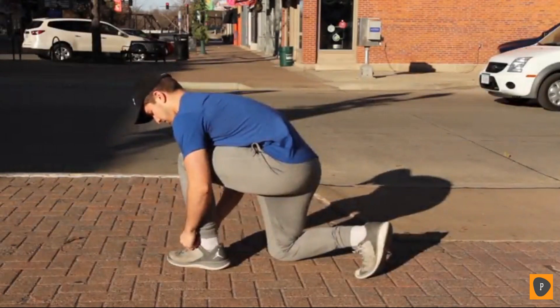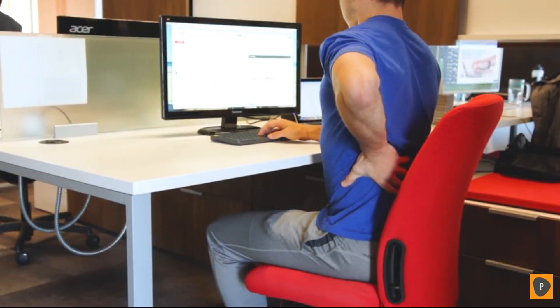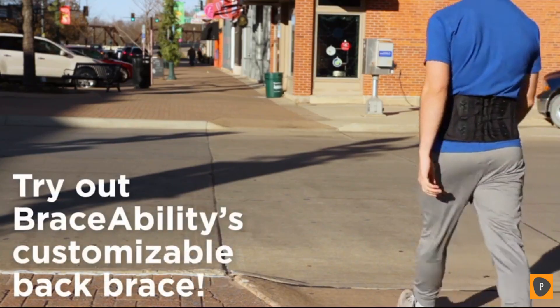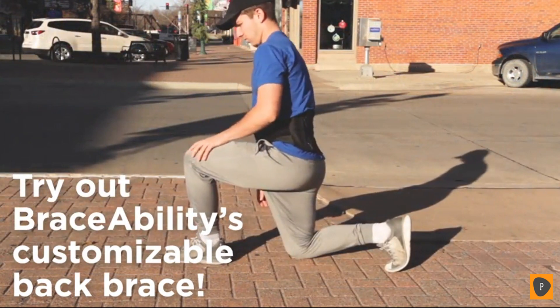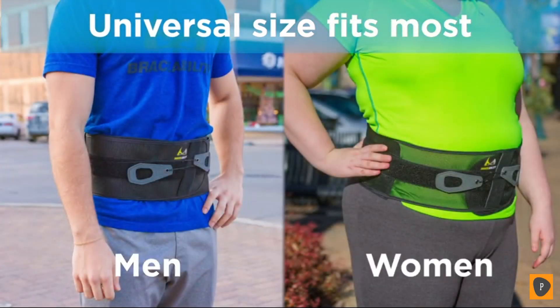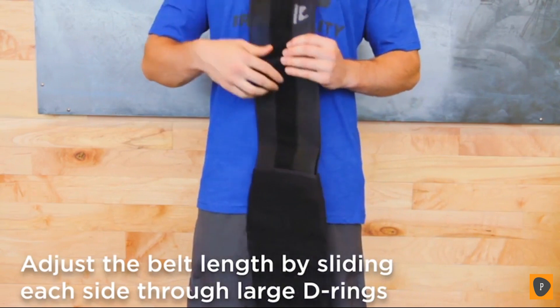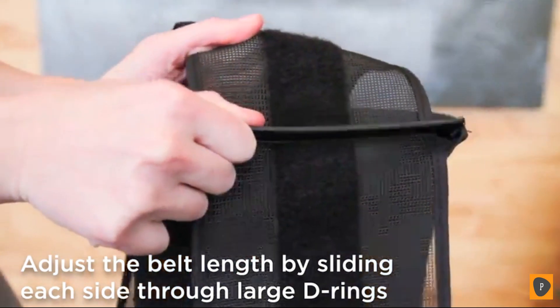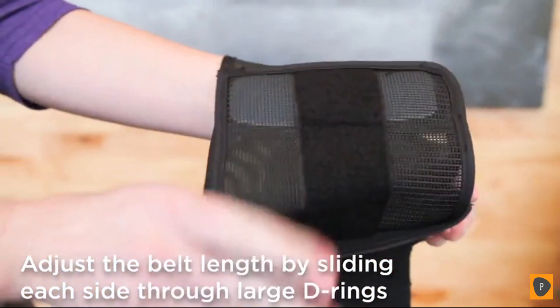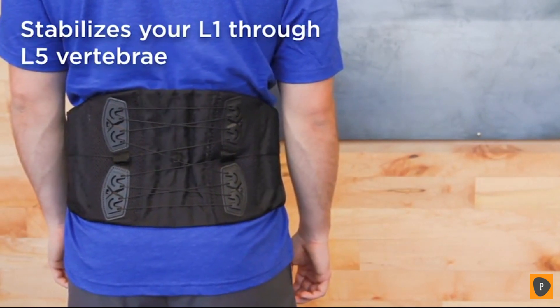Are you looking to alleviate acute or chronic low back pain, low back strains and sprains, or disc herniation? Braceability is introducing a fully customizable back brace that will comfortably fit men and women in most any body shape. Thanks to its one size fits most design, you can easily adjust the length of the belt — just slide the belt through the large D-ring until your desired length is achieved. Make sure to adjust the right and left sides equally for optimal support.